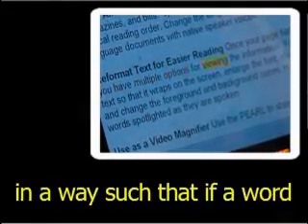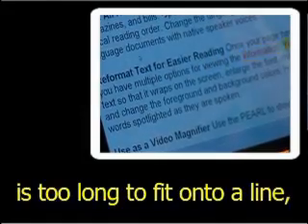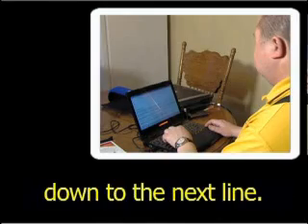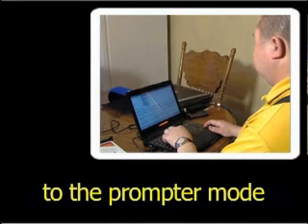the display is adjusted in a way such that if a word is too long to fit onto a line, the entire word is moved down to the next line. This is identical to the prompter mode described above.